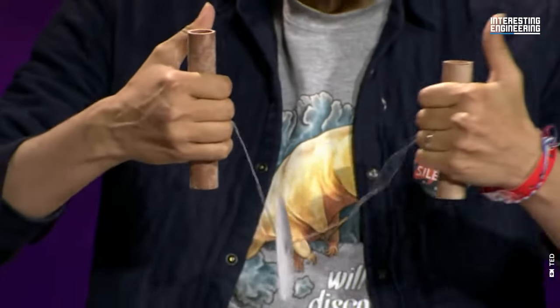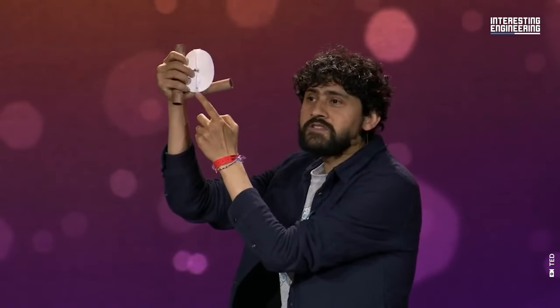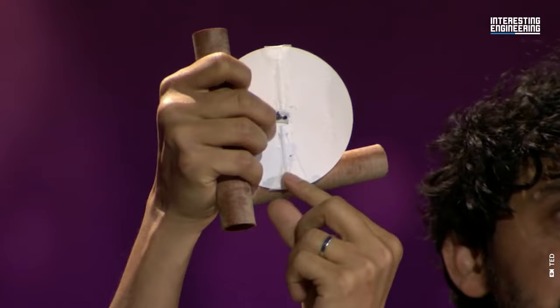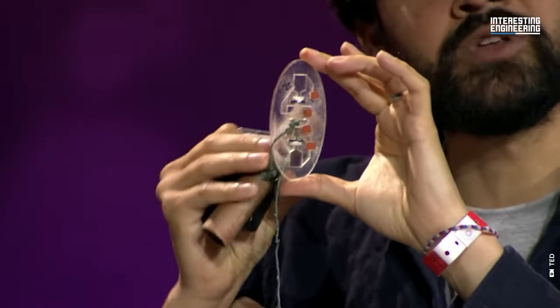Once they had it, they made a so-called hand-powered ultra-low-cost paper centrifuge, or simply paperfuge, to be able to do nucleic acid tests out in the field itself.